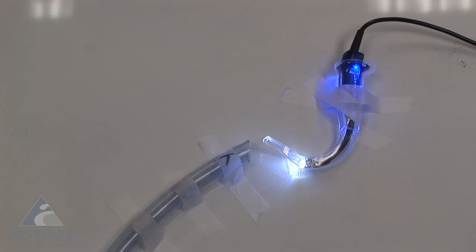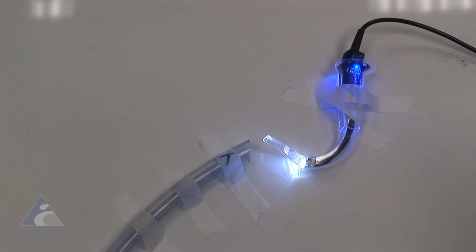There will no doubt be other solutions to this tricky and frustrating situation, but there are some tools which I'm going to show you which will almost always provide the solution to this particular problem. This mock-up is intended to show some of the problems with intubation with a video laryngoscope. I'm just going to point out some elements of the mock-up.